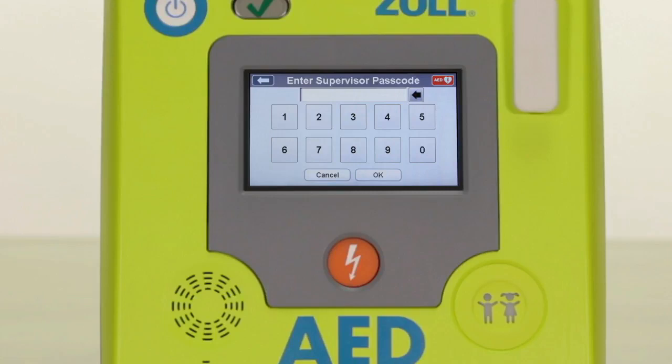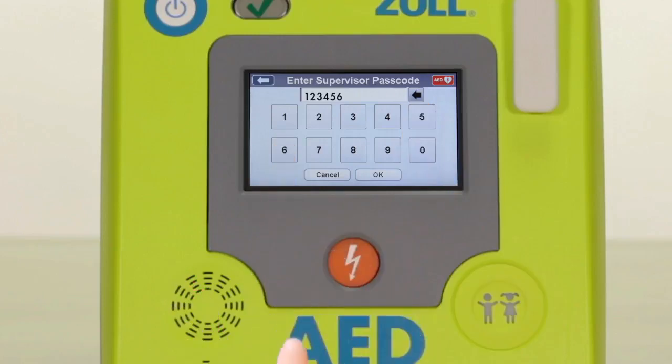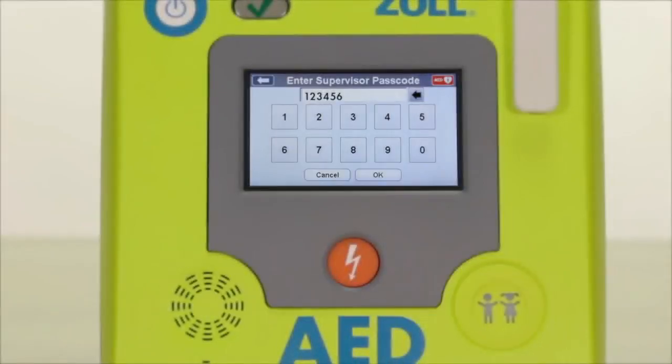The default passcode on a new ZOLL AED3 is 123456. If you wish to, you can create your own passcode in the advanced configuration settings. We will cover this later in this video when we discuss advanced configuration settings.